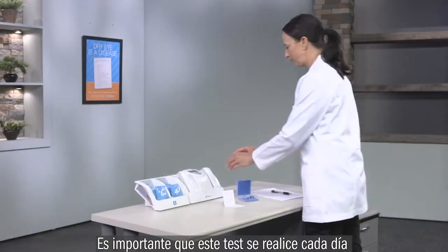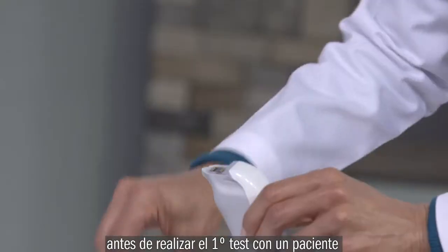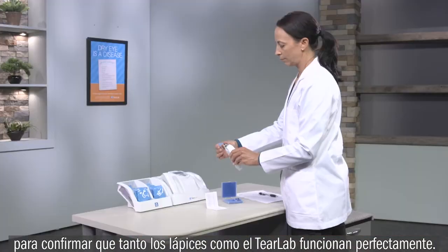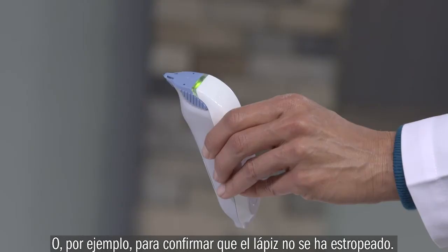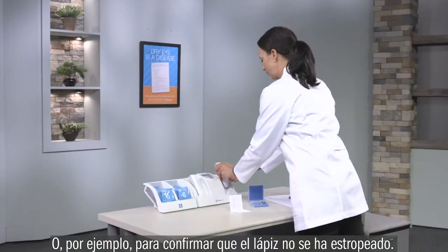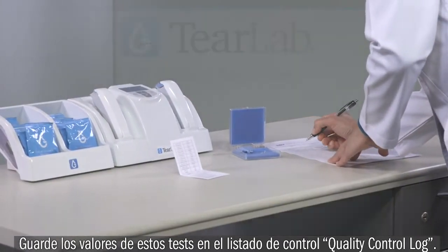As a reminder, they do not measure tear fluid or solutions and should not be used for testing on a patient. It is important to use the electronic check cards once per day on the days that patients will be tested to confirm that the system is working properly, or if, for example, you dropped a pen and want to make sure that it is not damaged. Record the test result in the quality control log.